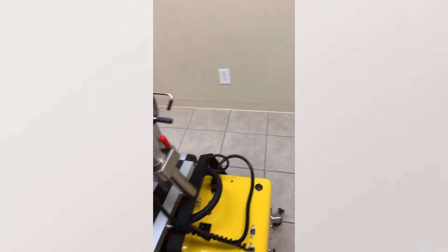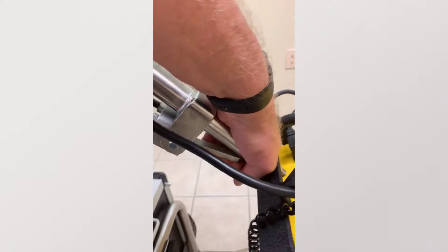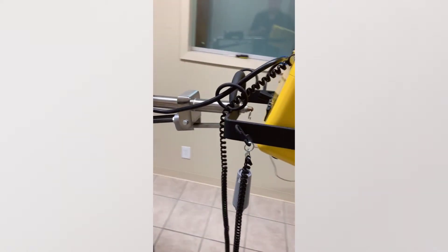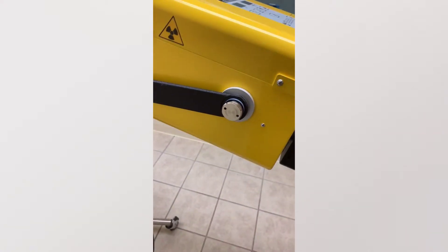To access and actually lift this system up, you grab this control panel right here, release, and easily move the panel up and down. To straighten the panel, if you want to take a floor shot, it's just a matter of lifting and moving.